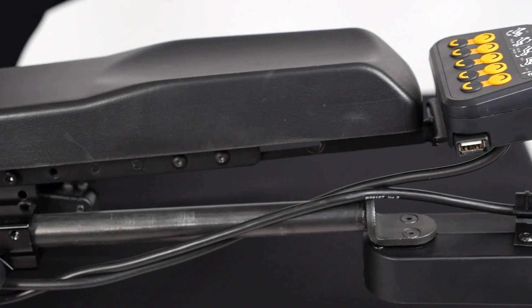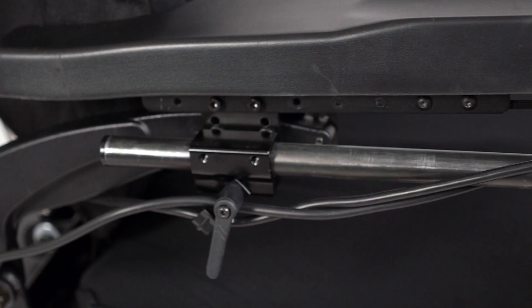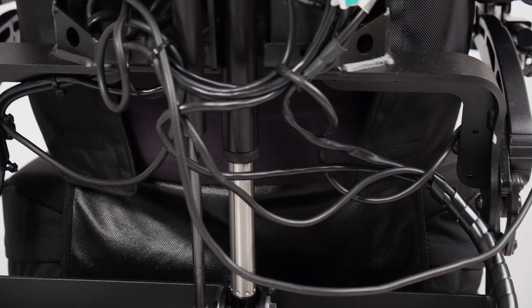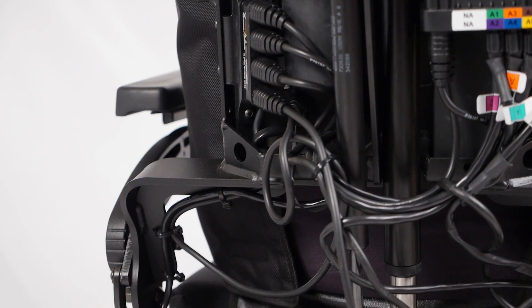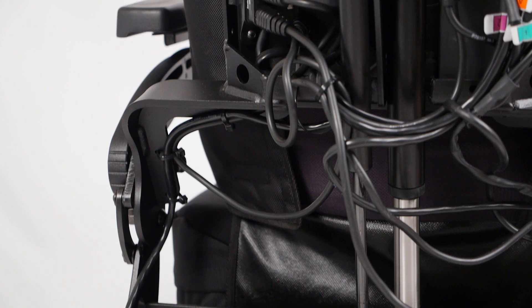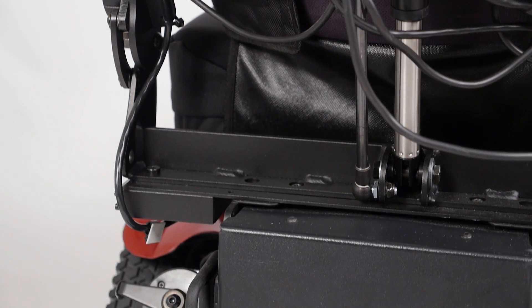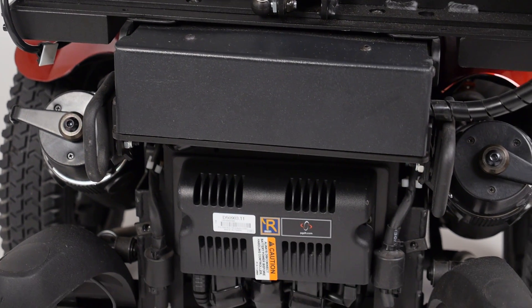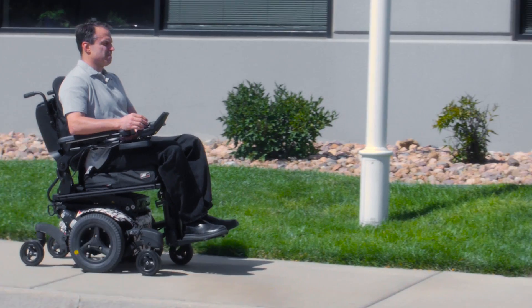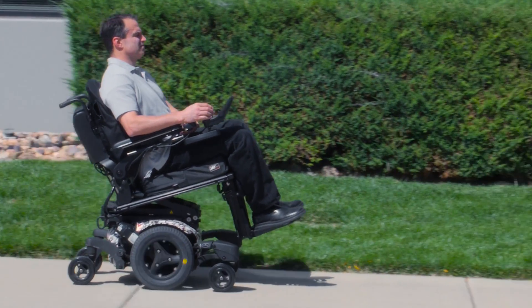This incredible flexibility is available because, unlike systems that are hardwired to adjust the seating functions, the Control-5 is designed to interface directly with the main chair controller and all of its various menu functions. And you can adjust the seating while driving.